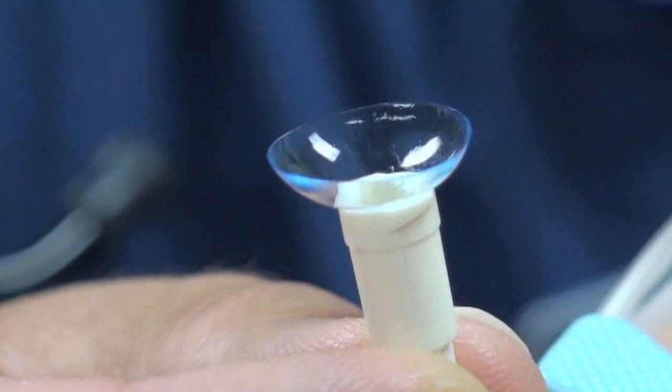Keep in mind that this technique does not work well for soft contact lenses. For these, just remove them with a swab and skip the suction entirely. Lastly, I'm not sure if the ointment ruins the hard lenses for good, so you might want to warn the patient in advance.